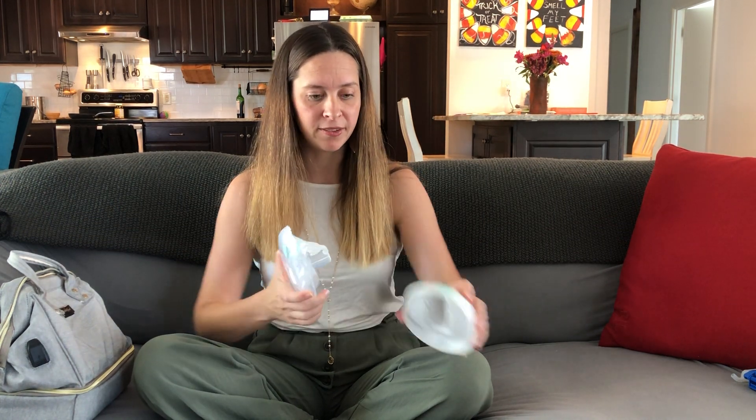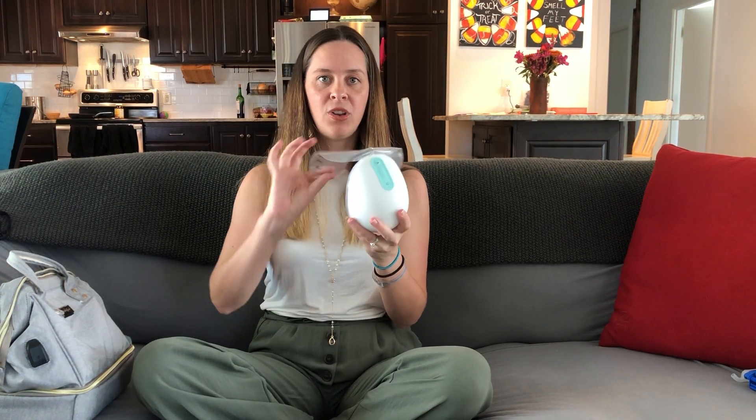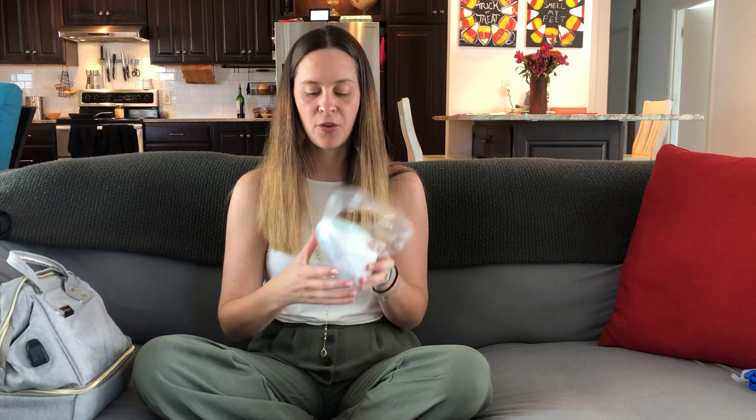However, the bags are a little bit expensive. Not wanting to waste plastic — we're a little bit crunchy — we looked for another option. When I said you can have a bag out, here's another option: if you don't want to shove the bags in, this is another way that you can pump.